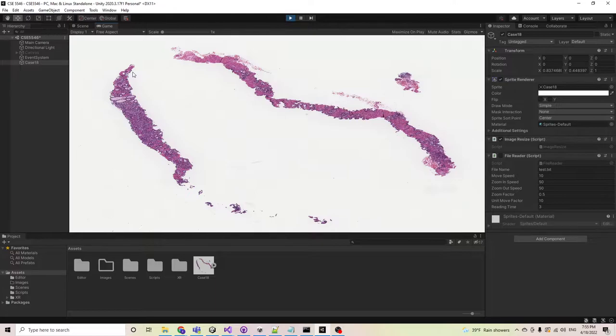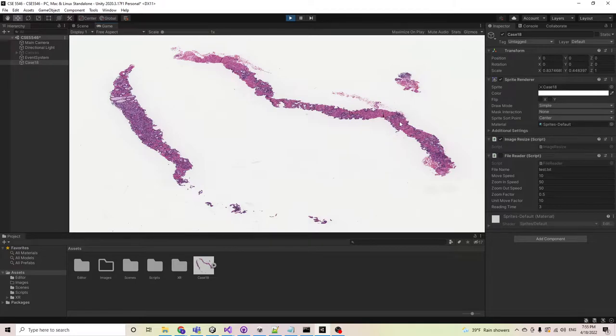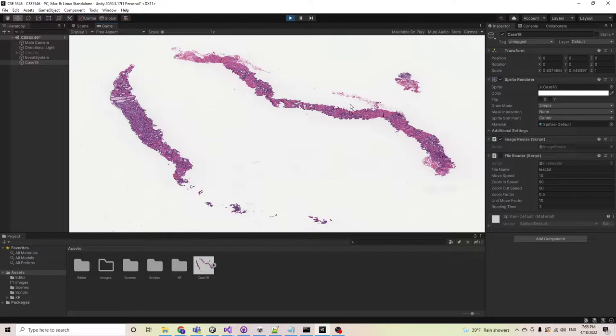So in this mode, the user has the option to use their mouse as an indicator for the position of the image relative to the screen and use the mouse wheel to zoom in to that position.